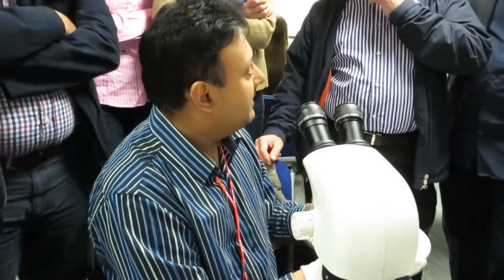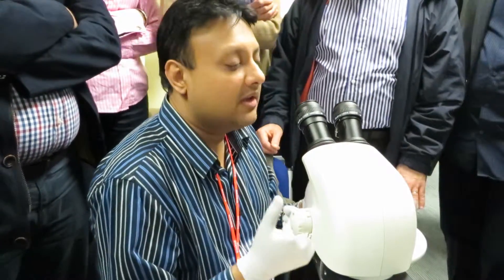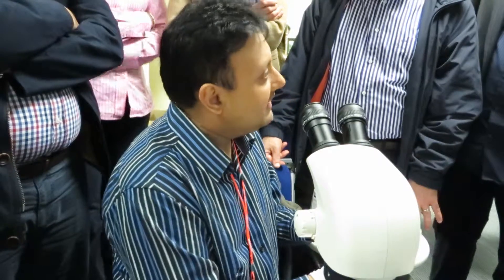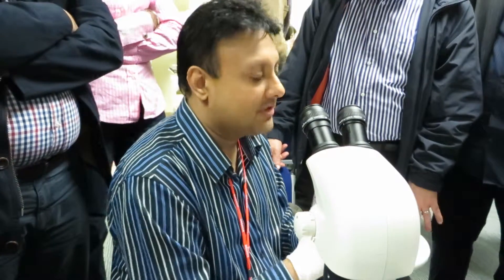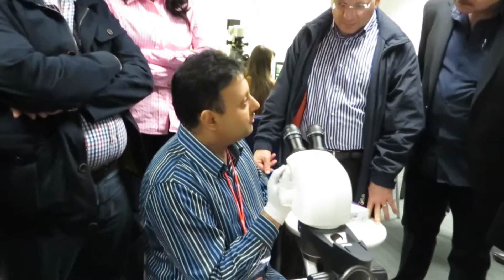You have to do tubing in a class 2 cabinet with total sterile attire. You have to wear a theatre gown, a mask and a hat, and none of your DNA should be exposed in that environment. Even if you have an assistant helping you label the tubes, they should be dressed in the same way.